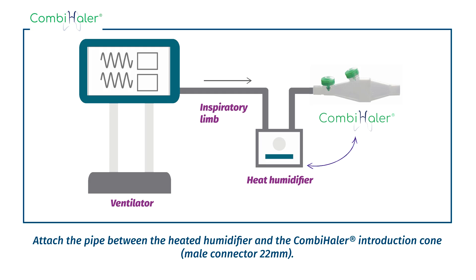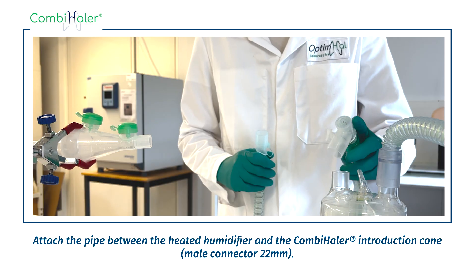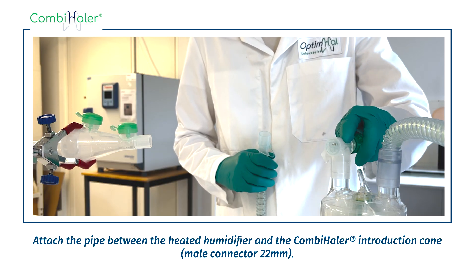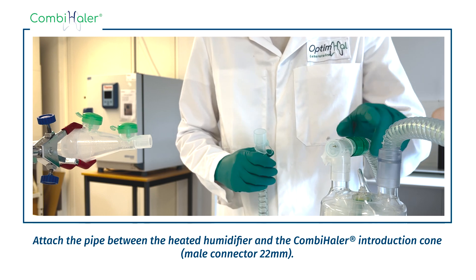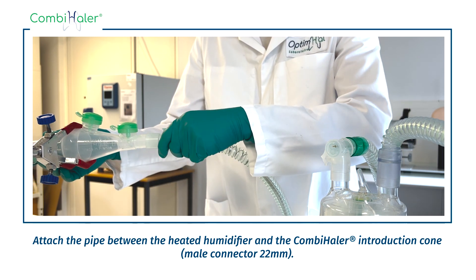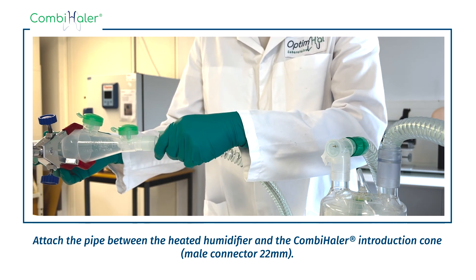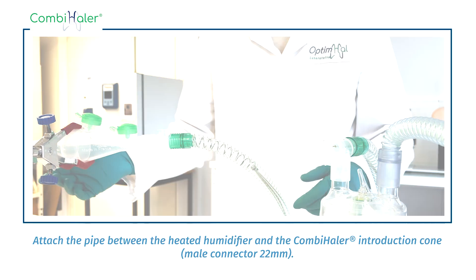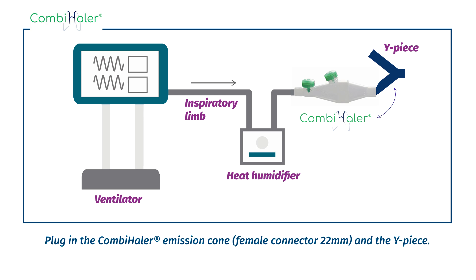Attach the pipe between the heated humidifier and the Combihaler introduction cone. Plugin the Combihaler emission cone and the Y-piece.